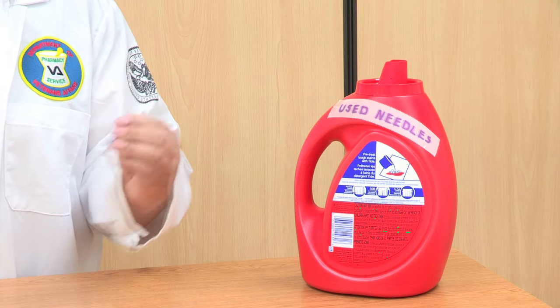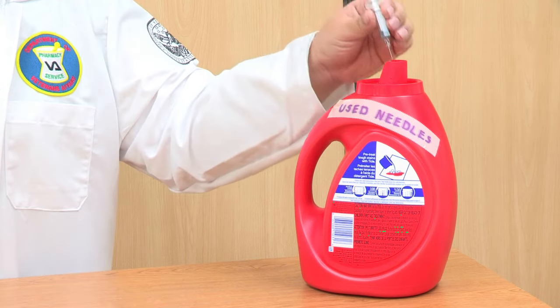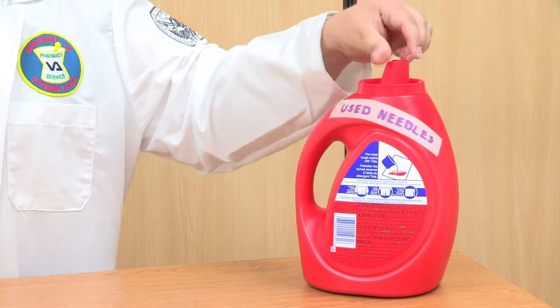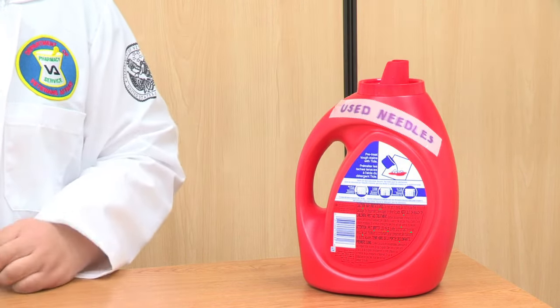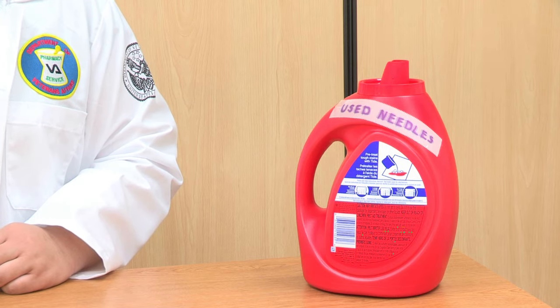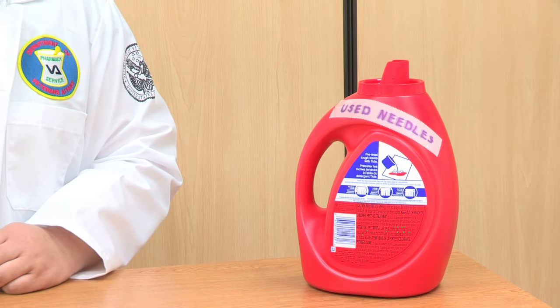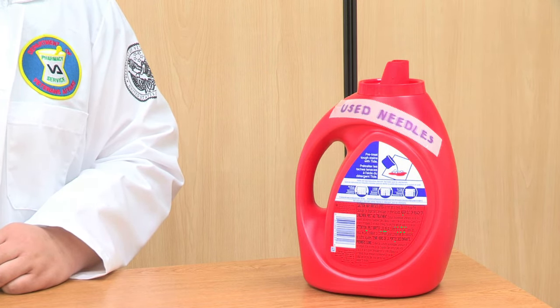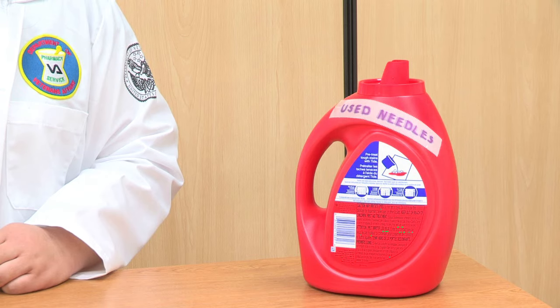Discard the entire syringe with needle attached into a sharps container or a heavy-duty leak-proof bottle. Follow your local or state policy on proper disposal of sharps and needles.